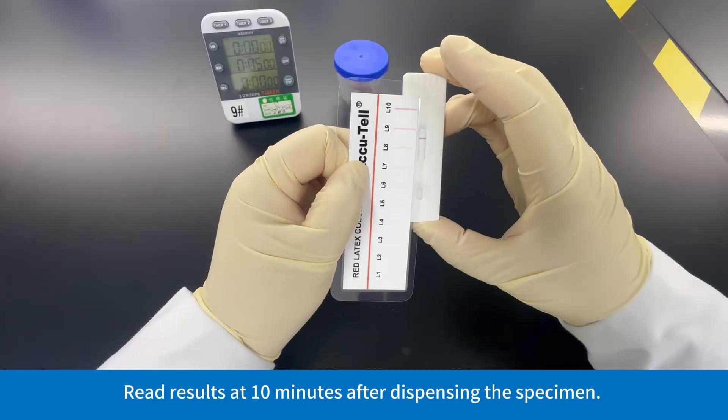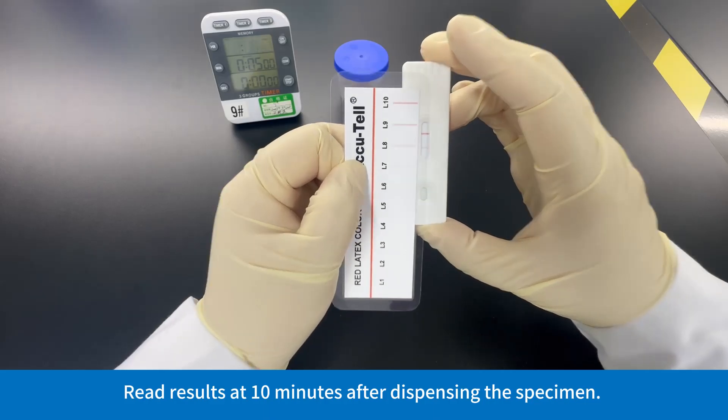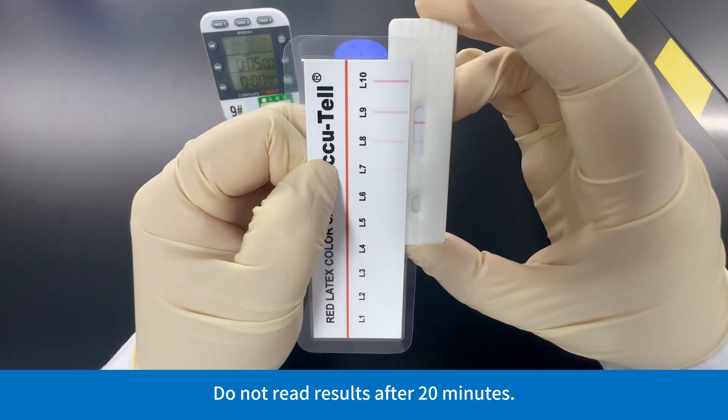Read results at 10 minutes after dispensing the specimen. Do not read results after 20 minutes.